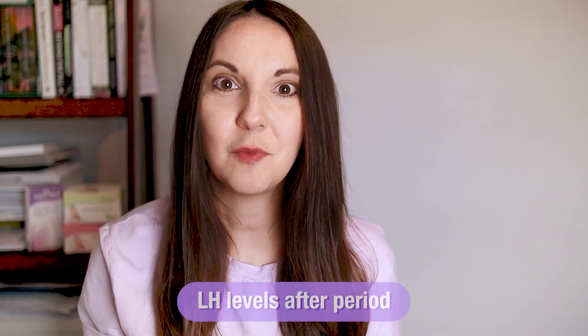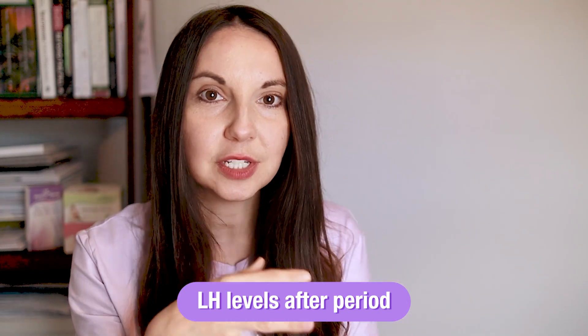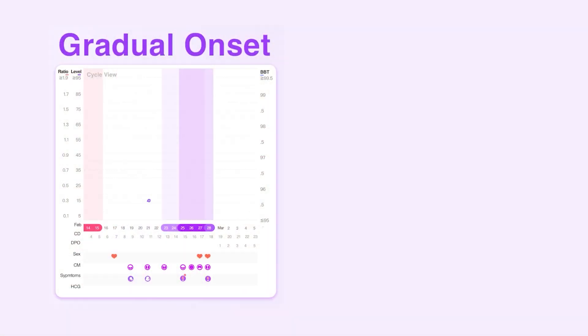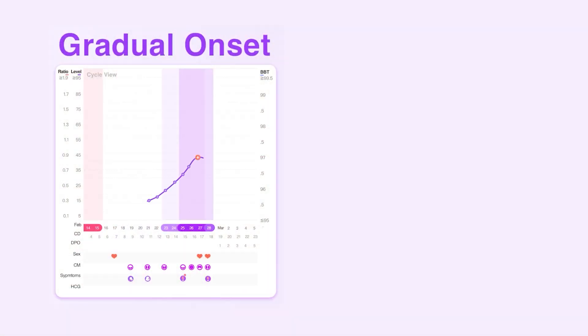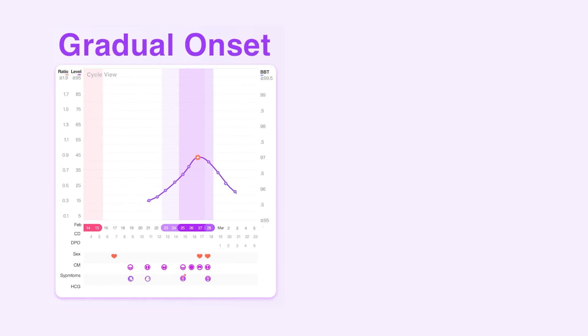Week one of testing, you may notice a low result — anywhere from maybe 0.2 or 0.3. Your LH may fluctuate up and down just slightly throughout that first week as you're approaching your fertile window. But once you get into that fertile window, you may notice your LH go up higher and higher. We call this a gradual peak — when it's taking a couple of days to increase, that's a gradual peak.